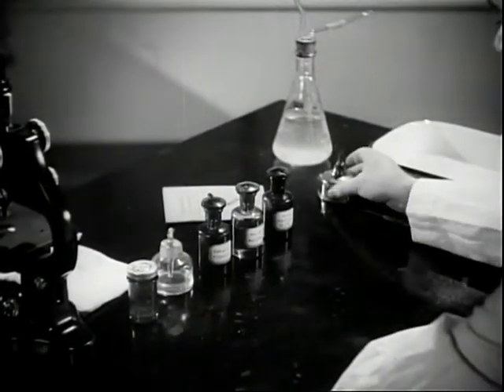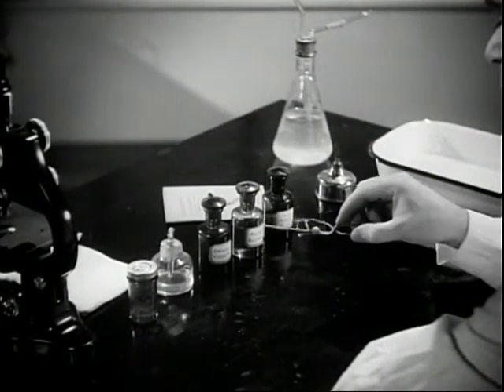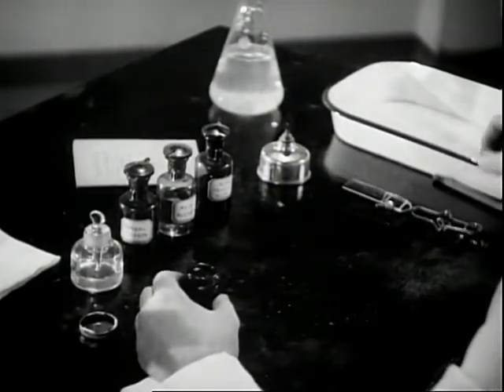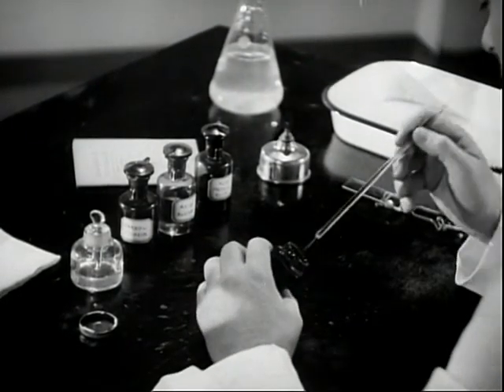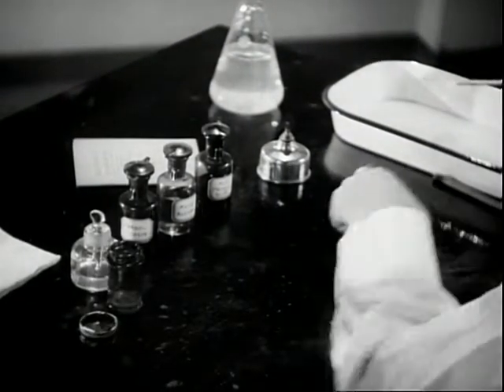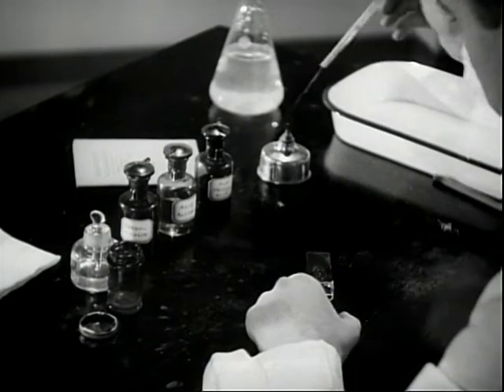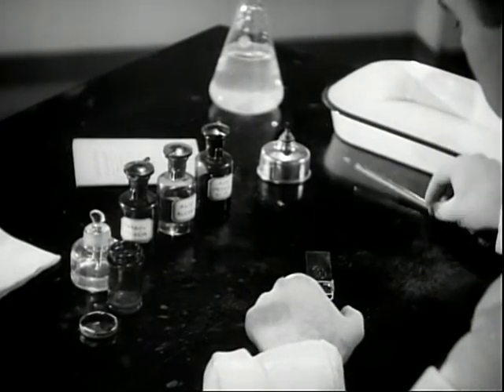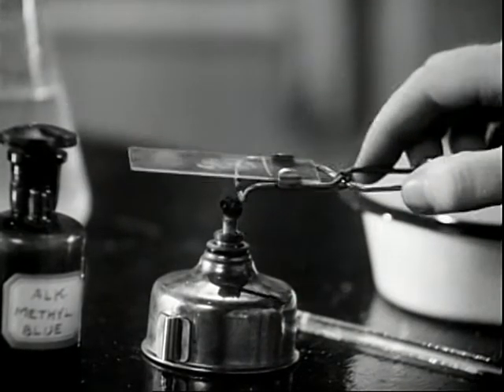We need also an alcohol lamp, a platinum loop, and a glass slide. Flame the loop until it is red. The selection of proper particles of sputum is important. Small purulent or caseous particles should be fished out and smeared thinly on the slide. After the smear has dried, it is fixed in the flame. The smear must not be burned.